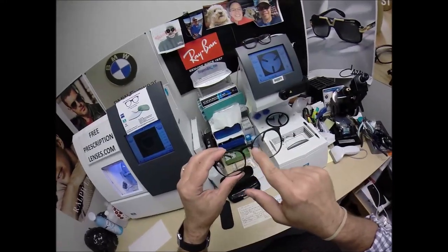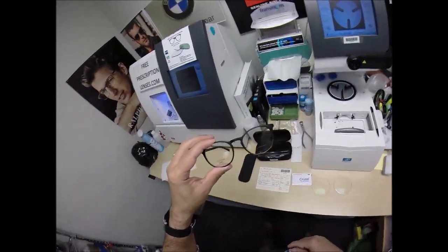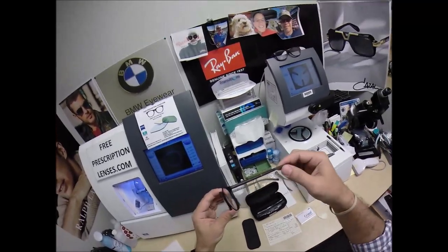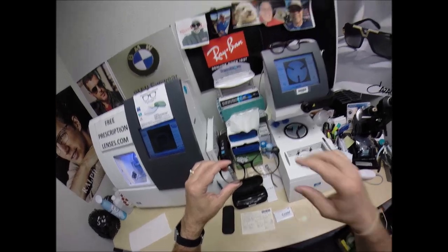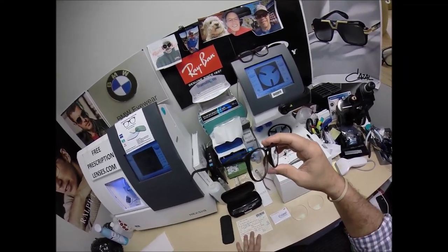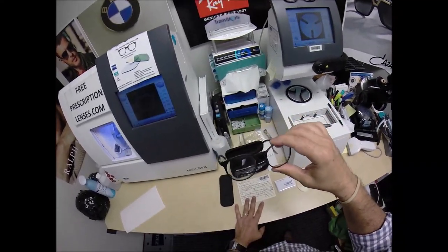It has the stylish keyhole bridge, but the thing that makes the Ultem frames, the Ultem, the type of plastic is also called Ultem, but this company, Thema Optical, who produces it, called the brand, the type of plastic that it is, Ultem, U-L-T-E-M.